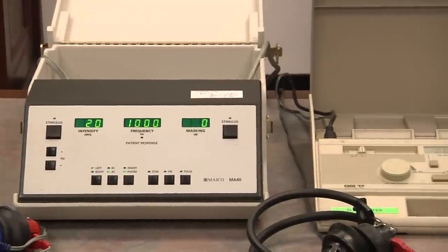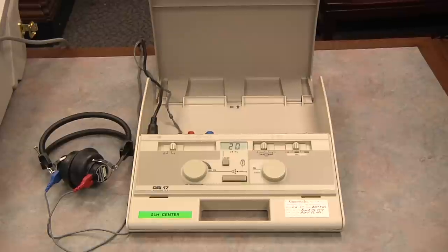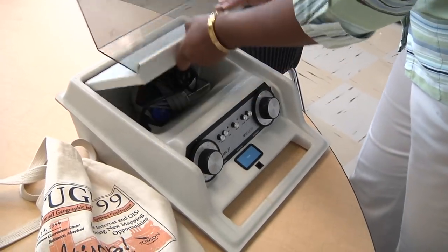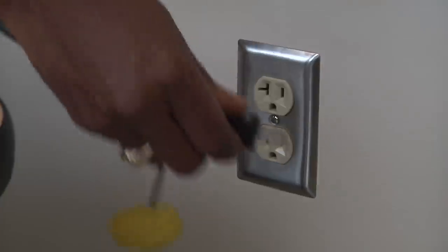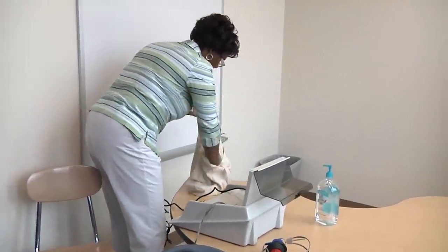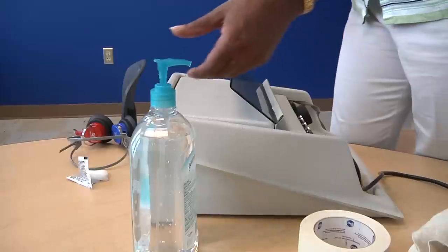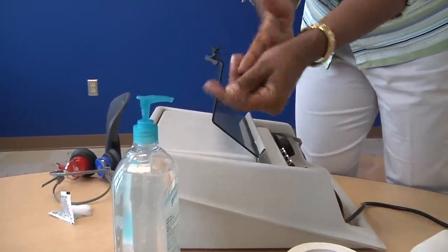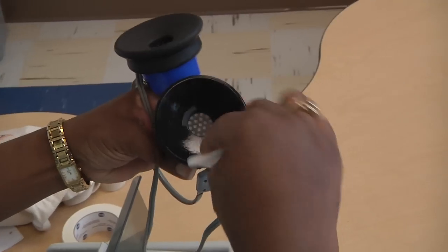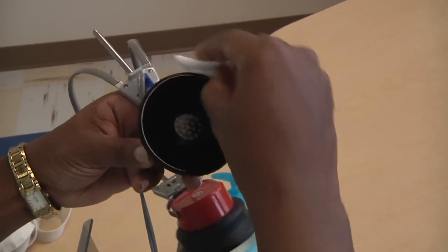An audiometer is an electronic instrument designed to measure hearing. Avoid dropping or banging the audiometer as it is easily damaged. It should be stored at temperatures above freezing and below 90 degrees and should not be left in a car during extreme weather conditions. The cords should be stored free of tangles and twists. When preparing the audiometer for a hearing screening, first plug the instrument into a wall outlet. Take care not to create a tripping hazard by running the electrical cord between the door and the testing table. Be sure to set up the chair so children are facing away from the audiometer. Wash your hands or use hand sanitizer prior to the listening check and between each screening. Clean the earphone cushions using an alcohol-free wipe, as alcohol-based cleaners will damage the rubber cushions over time. Be careful to keep moisture away from the diaphragm of the earphone — that's the little hole in the center.